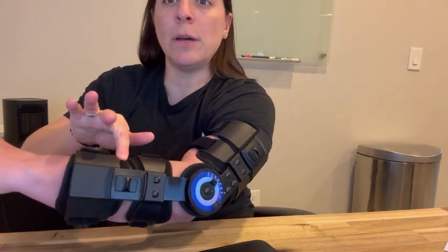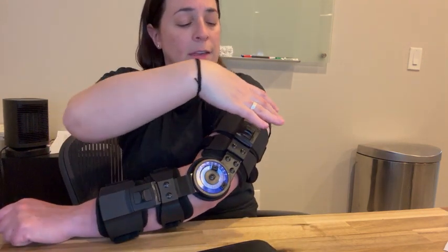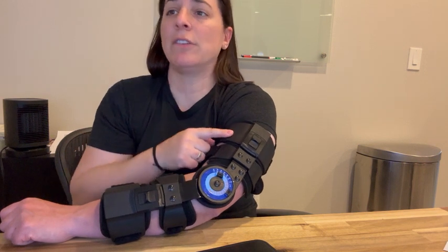It has a breathable soft foam right here that goes up against your skin, and of course adjustable straps as well. Now this has multiple different adjustment factors — the top piece adjusts from ten and a half to sixteen and a half inches, which is pretty impressive.